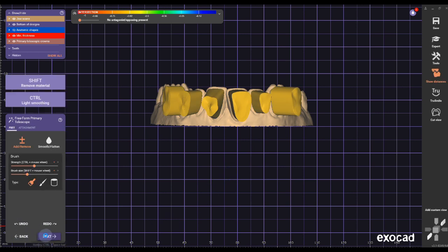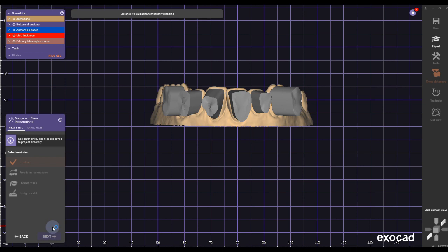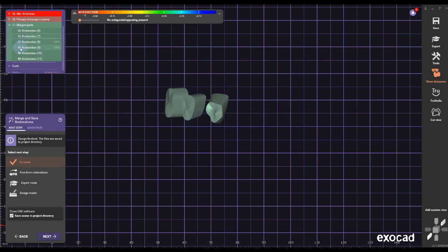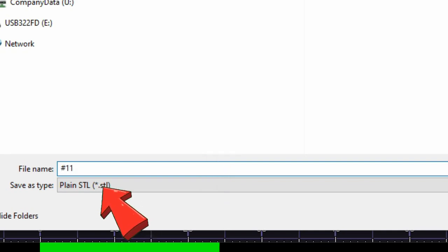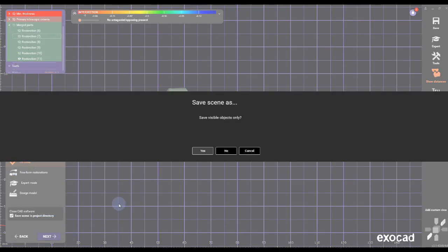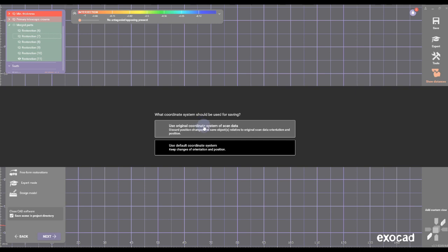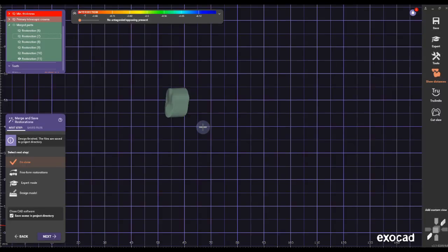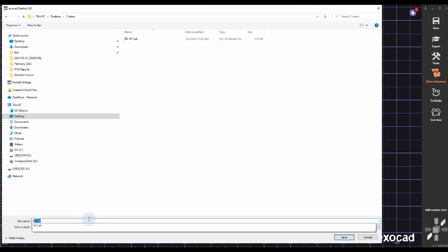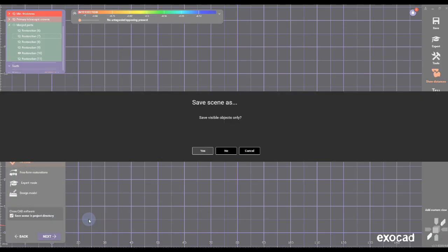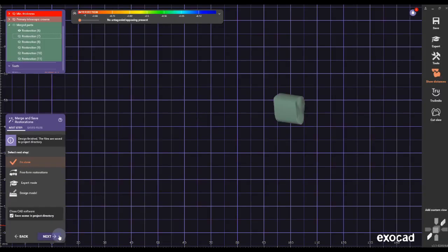When done, click Next. Here you have all your parts — go to Merge Parts and make only one visible. Right-click, Save As Mesh, name it number 11, click Yes. Same orientation — unclick it, go to the next one, Save As Mesh, name it number 10. Do this for every single tooth.